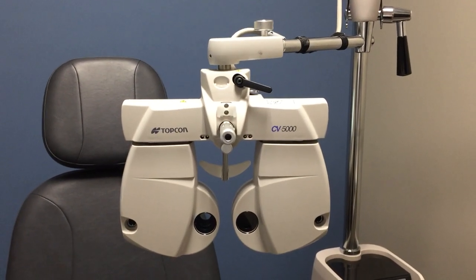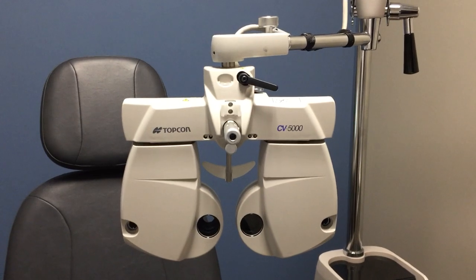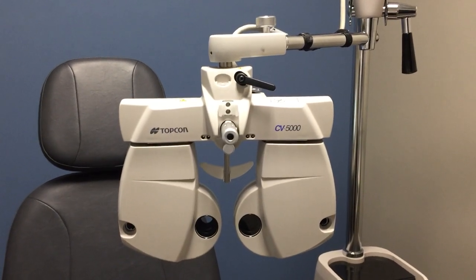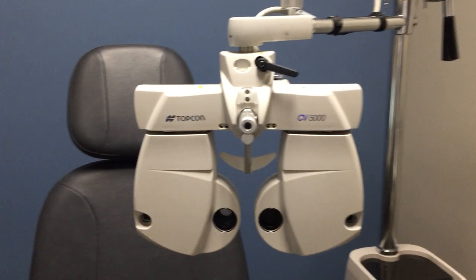Hello, this is Dr. Jeremiah Tampoi of Solus Optometry, and in this video I'm going to be doing a tutorial on how to use the Topcon CV5000 autophoropter.